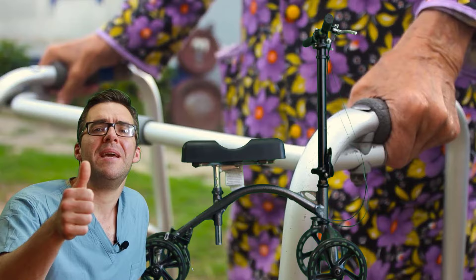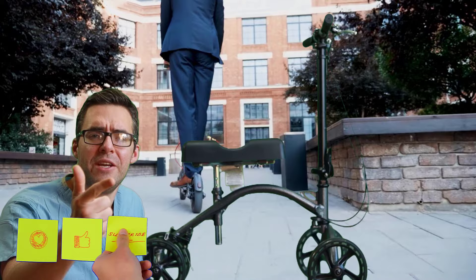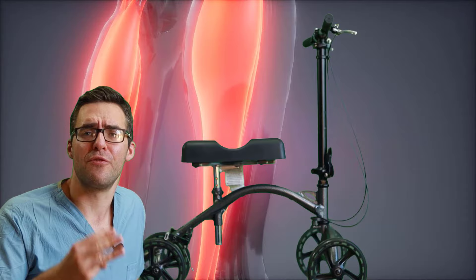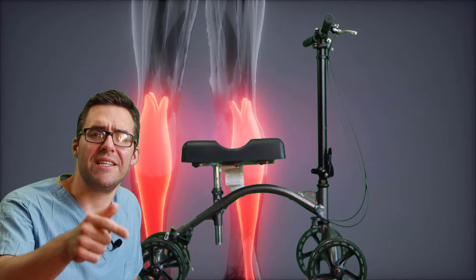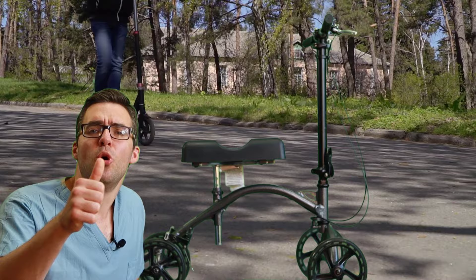When you're on it, make sure you move slowly. When you're moving quick, you're either leaning forward or leaning back — you're off balance, straining your neck, your back, hurting your knees. You're going to get sore joints. Be aware of debris and cracks on the ground — you can easily tip over. The biggest thing too: don't take tight turns.